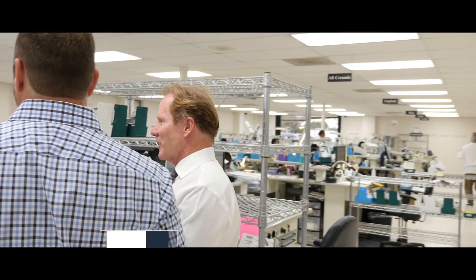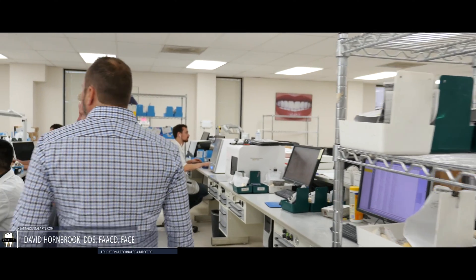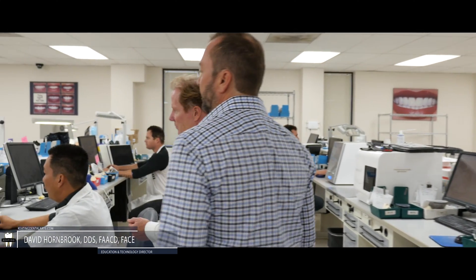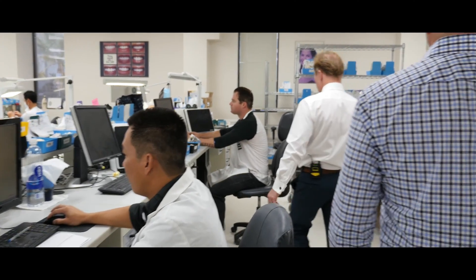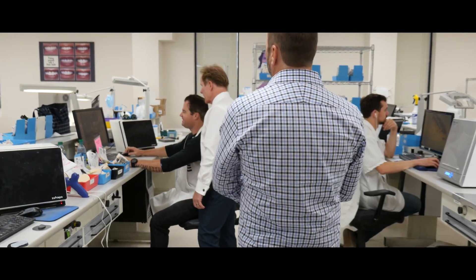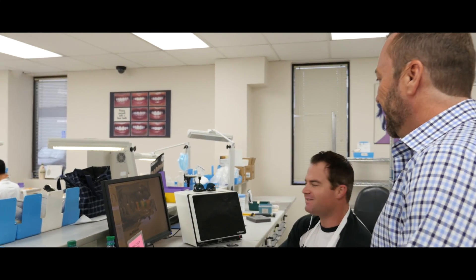So this is our digital department — we do a lot of CAD CAM. How you doing, Travis? This is Sean's other son, this is Alan Miller from AMD Lazers.